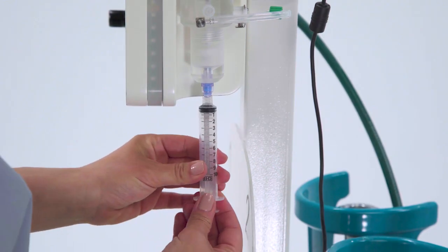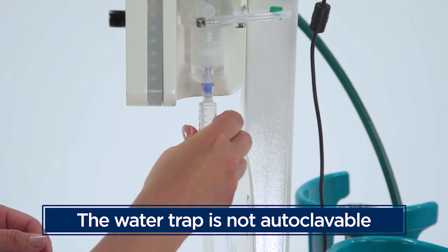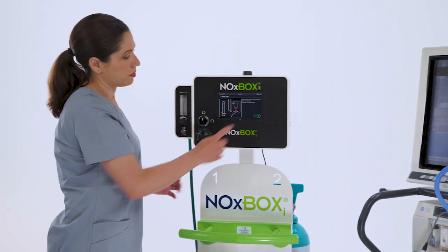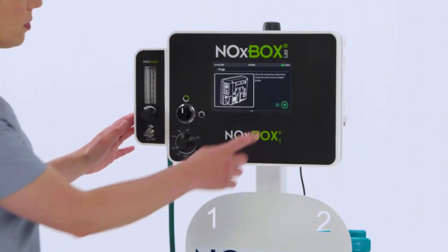Using the syringe provided, drain any moisture from the water trap. The water trap should be unscrewed and cleaned using alcohol-free cleaning wipes. It is not autoclavable. Perform one last visual inspection, checking to make sure all the hoses and consumable items have been properly disconnected and discarded.